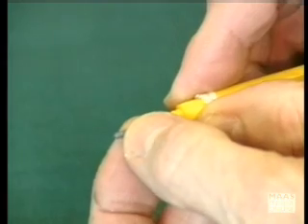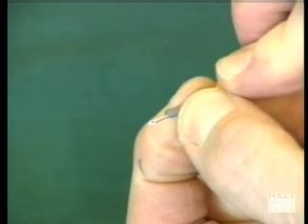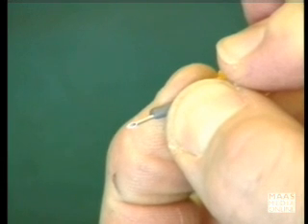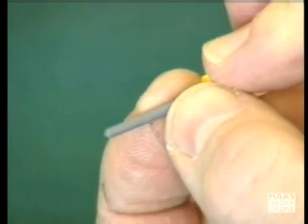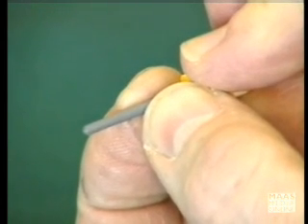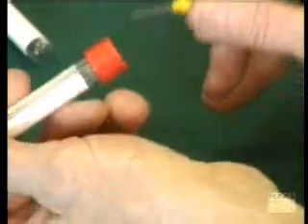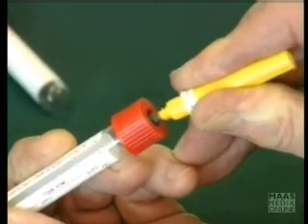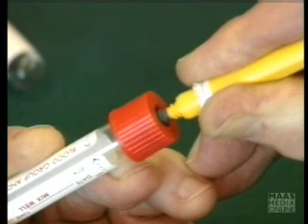I'm going to pull this sheath back, and you will see that the inner needle is exposed. And when you put your sample tube on, that rubber sheath is pushed back away from the needle point, and the needle point pierces the rubber cap of your sample bottle. You'll see the needle guard — the rubber guard — has been pushed up towards the hub.